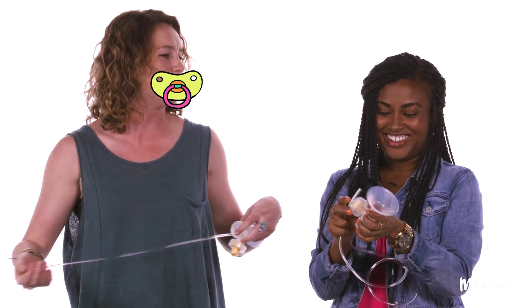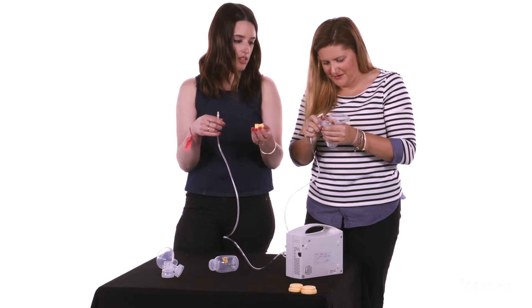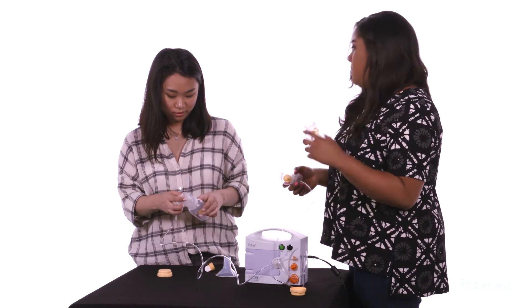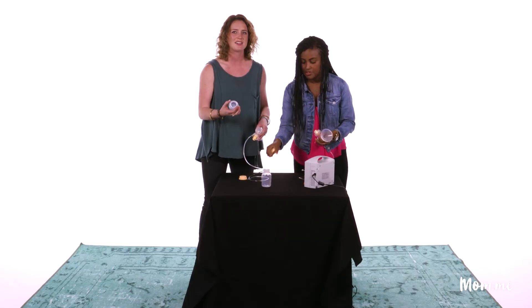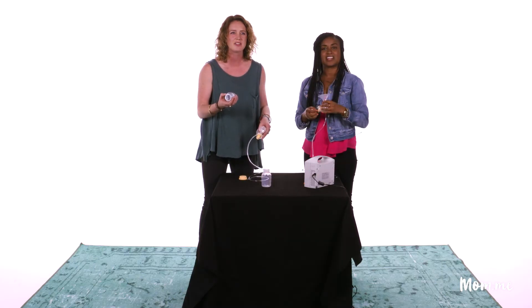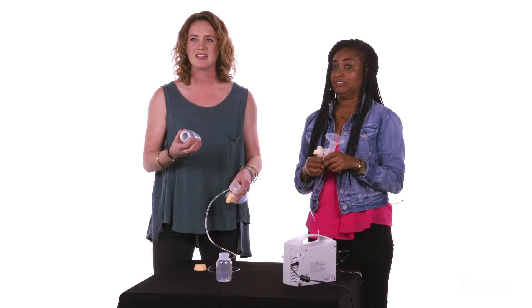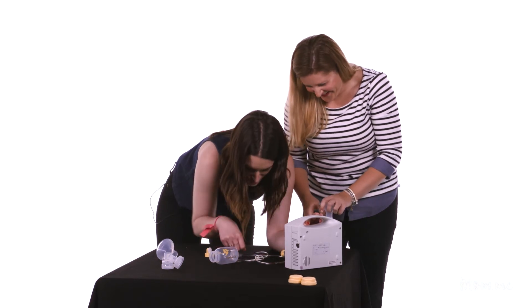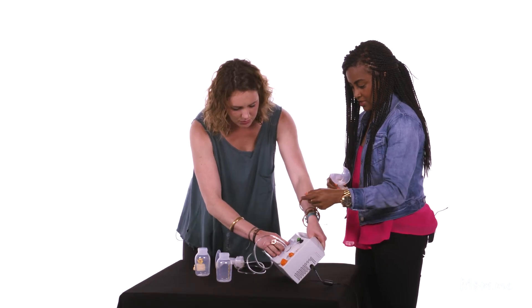There are people that already figured this out — we're the dumb ones. This is so small, why can't you just pump like a gallon? What does it taste like, I wonder — have you guys ever tasted your own breast milk? Is it funky? I think it'd be like a little sour. Has this been used before? This is gross. How are you supposed to get it in there?